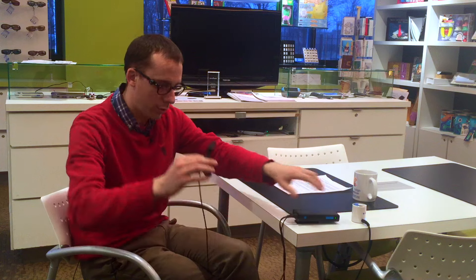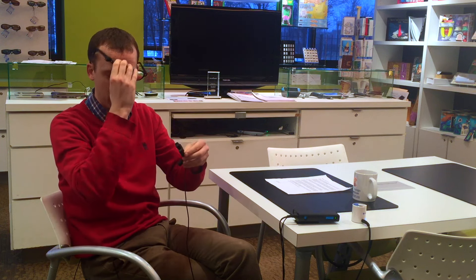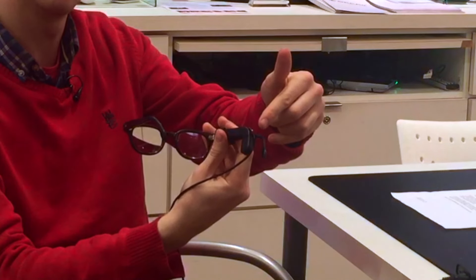We take the camera part and fit it onto a mount placed on the glasses. Once clipped into position, the speaker is on the inside next to the right ear. Normally the control panel would be clipped onto a belt with the wire tucked under clothing, but for this demonstration we'll leave it as is. An external speaker is connected so we can hear better for the demo, though normally the ear speaker is sufficient.